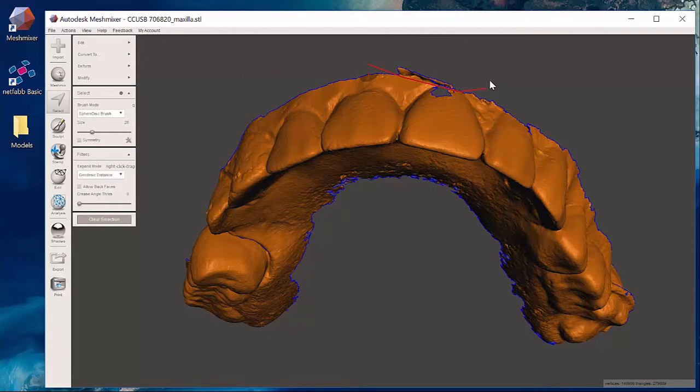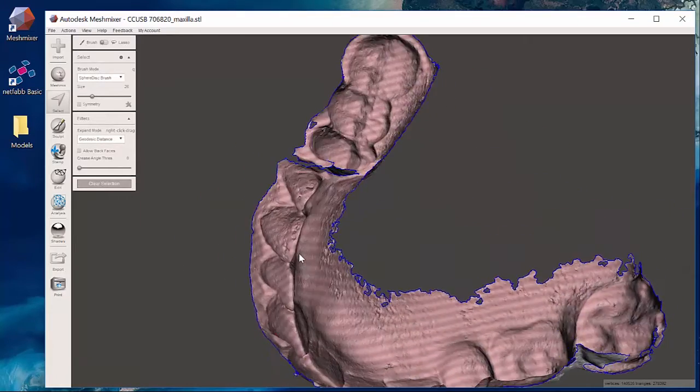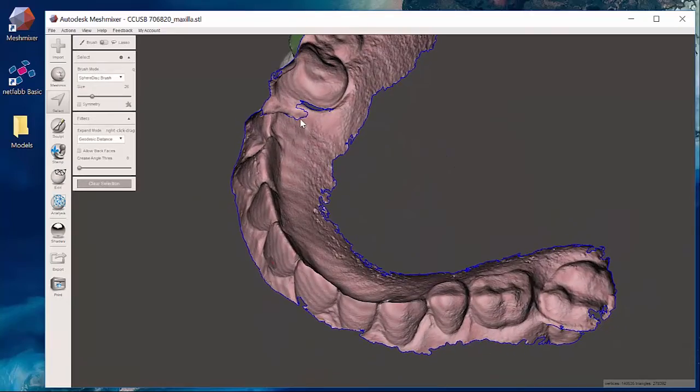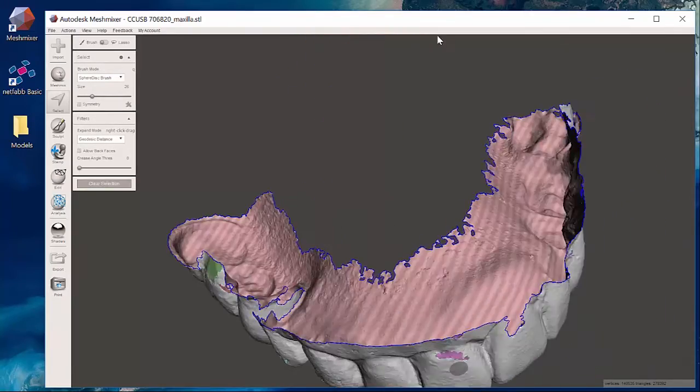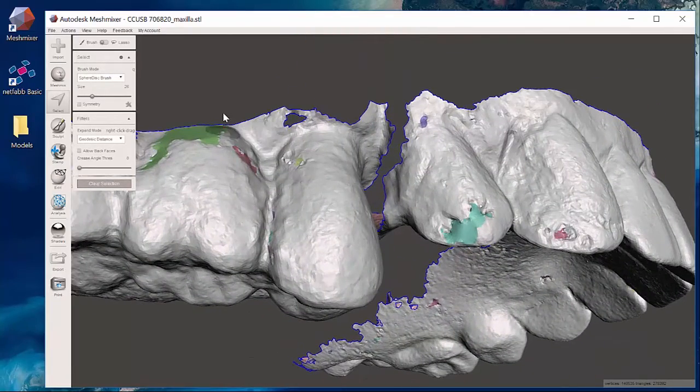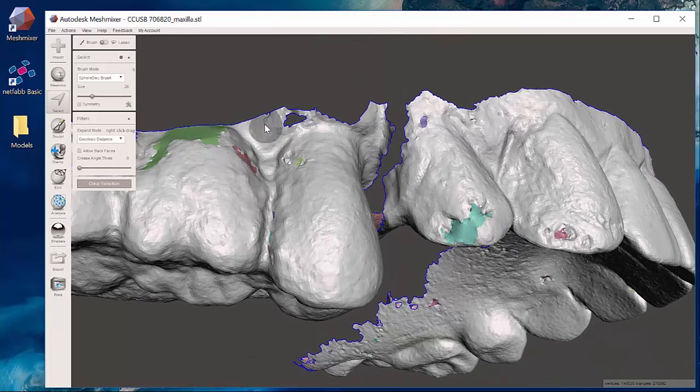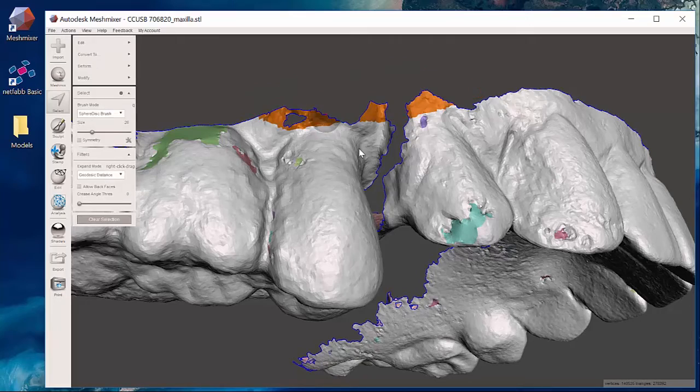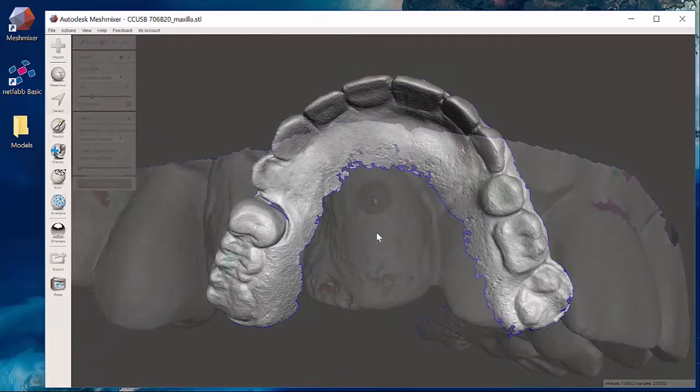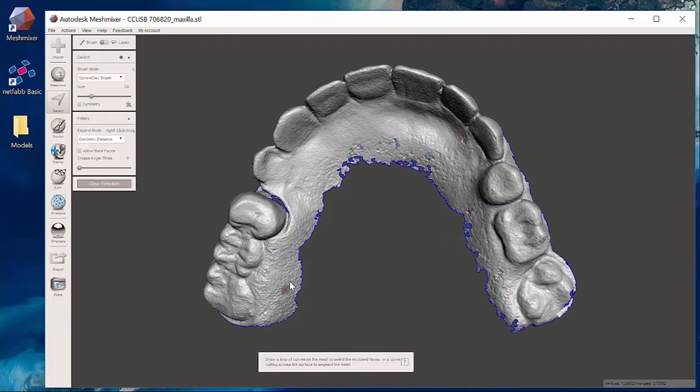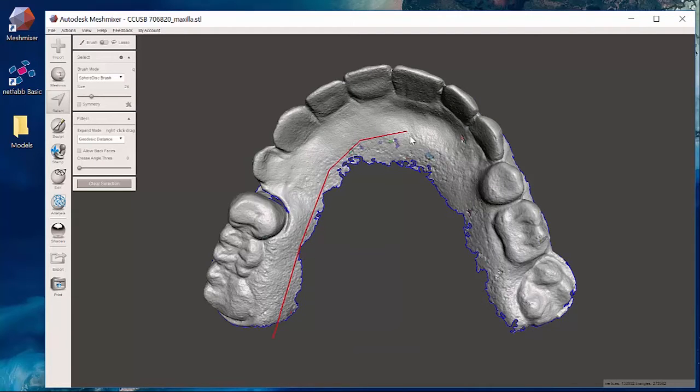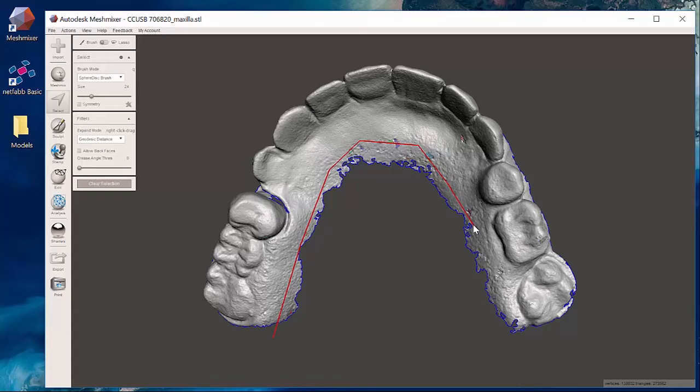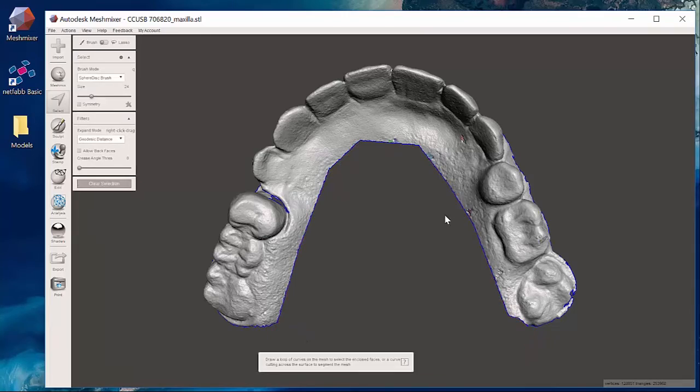So it's probably this area. If I cut that away, and sometimes it can be this right in here or even these little areas where it's just not a clean looking part of the scan. If I went ahead and took some of these features and cleaned out some of these little areas of scanning errors on the palate and just cut that away.